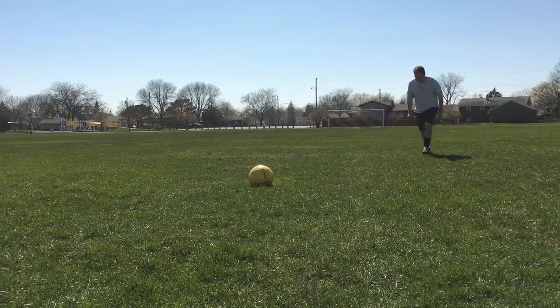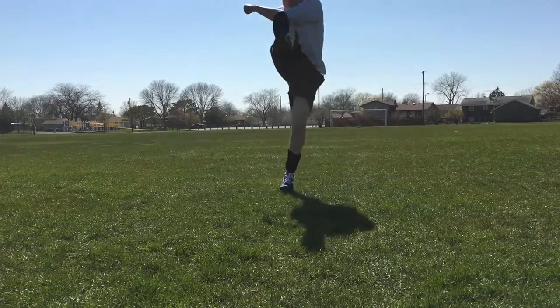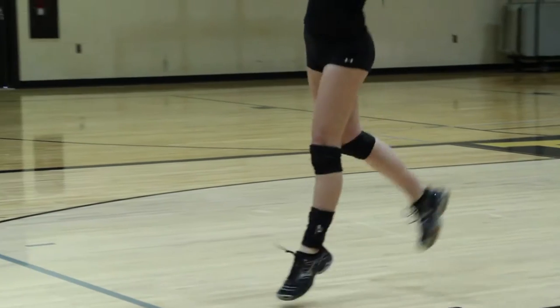If you're a hockey player or a soccer player, this brace can be applied up against the skin or up against the treatment area in contact with where the injury has occurred — to prevent it from happening and treat the area at the same time — while still allowing you to put your formal gear on and play your sport.